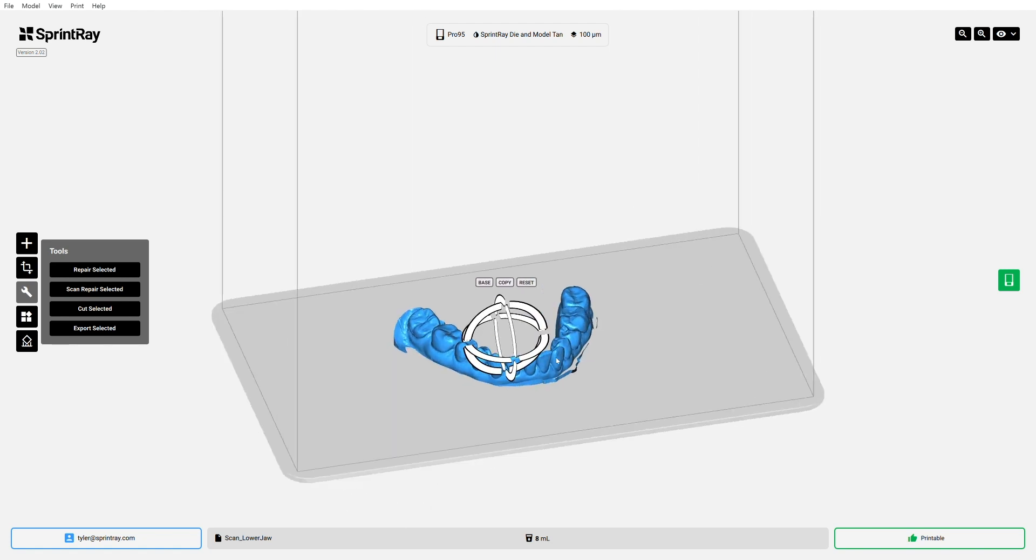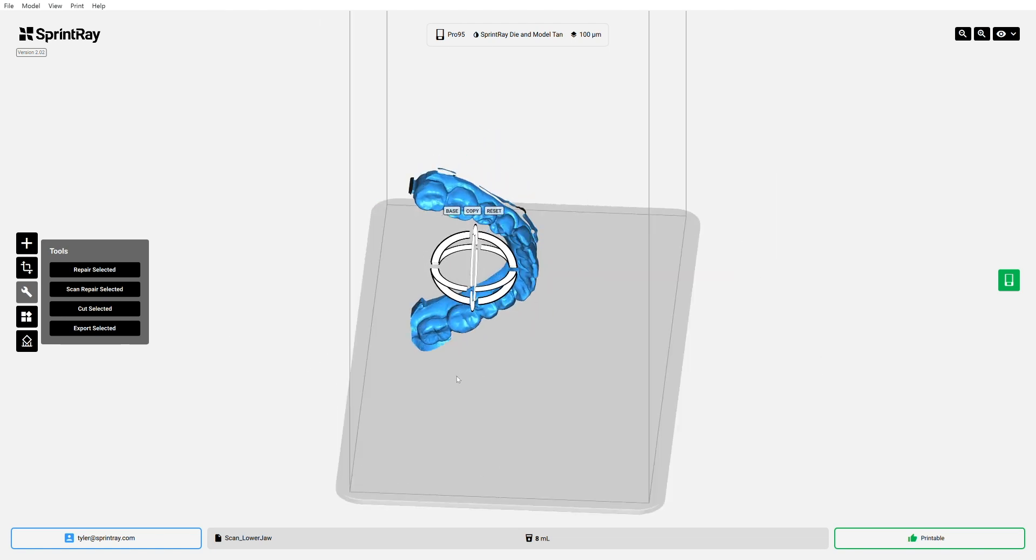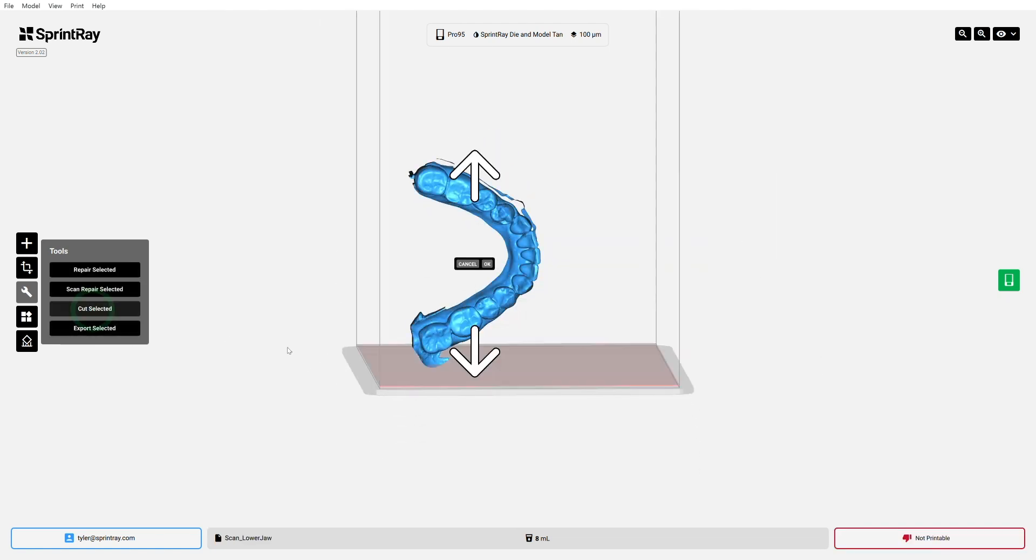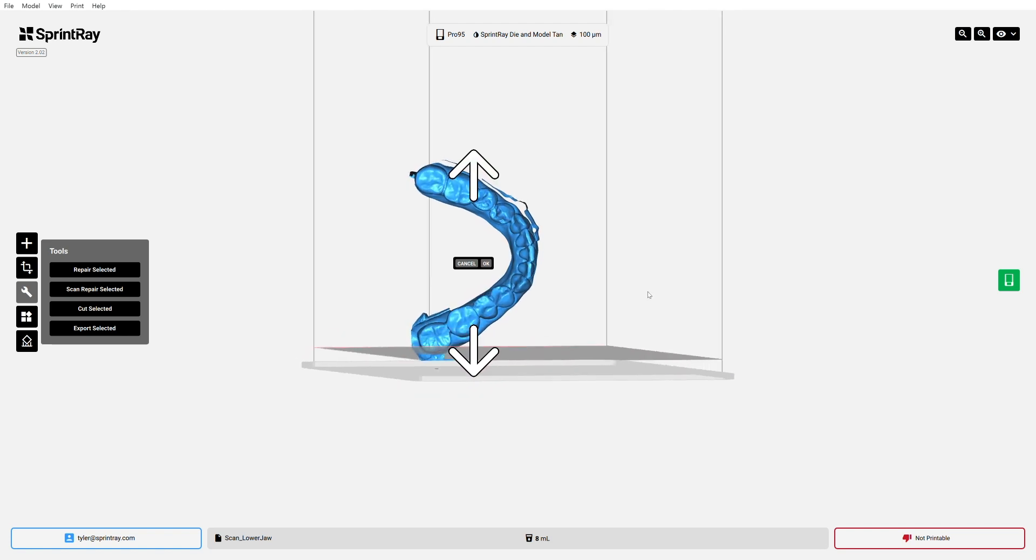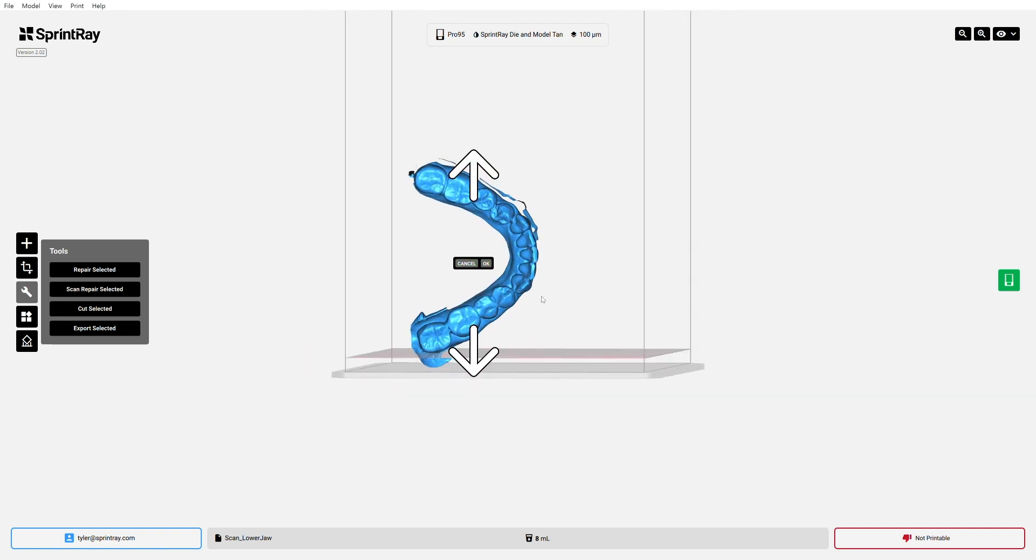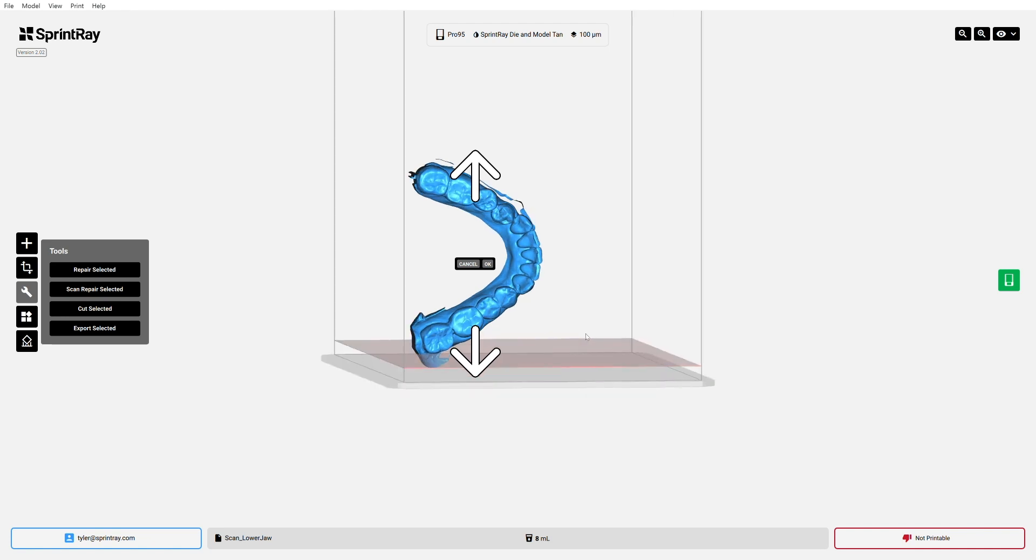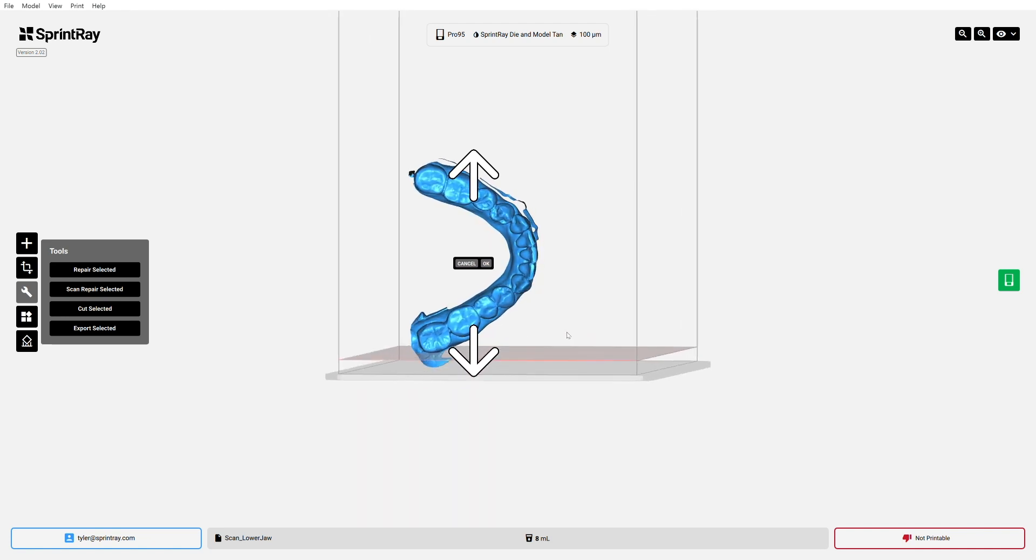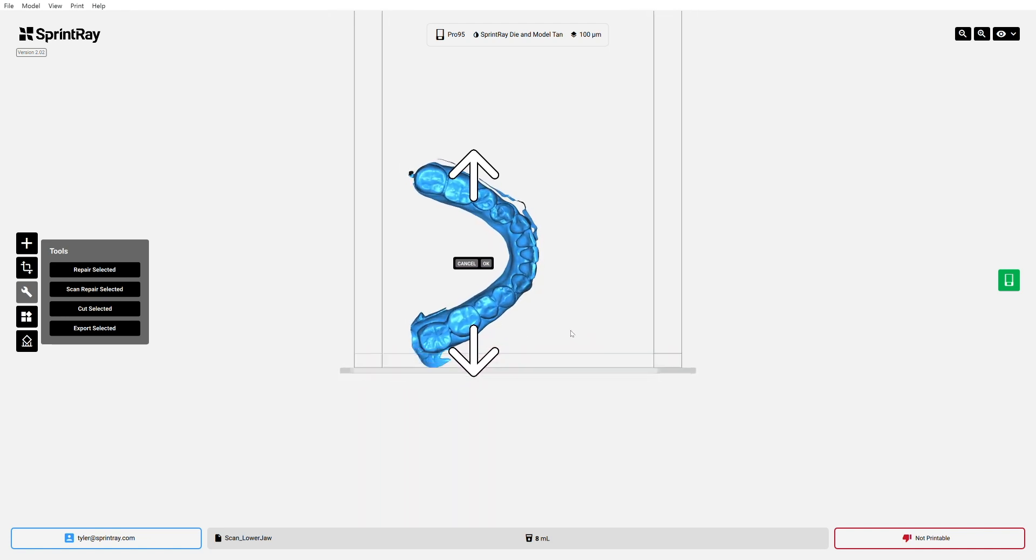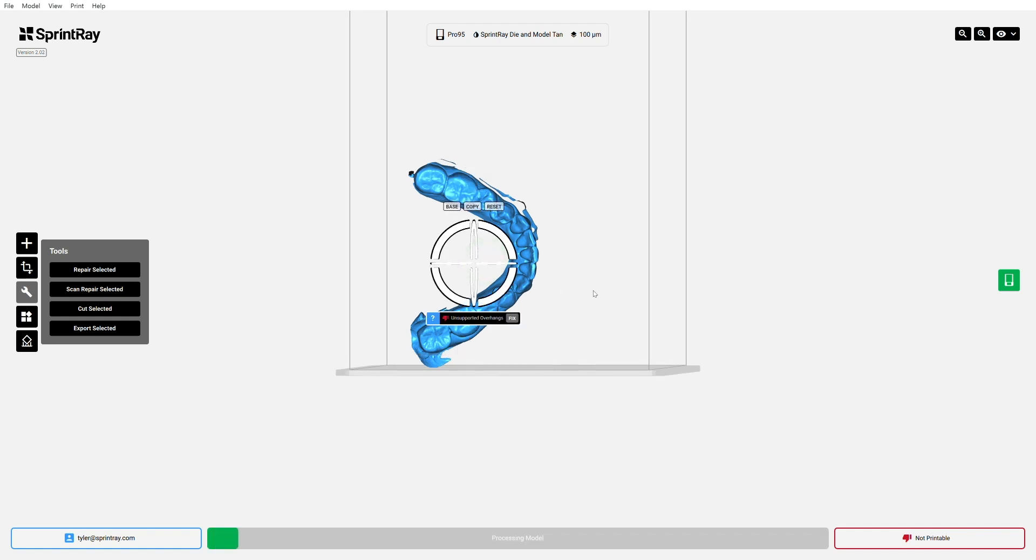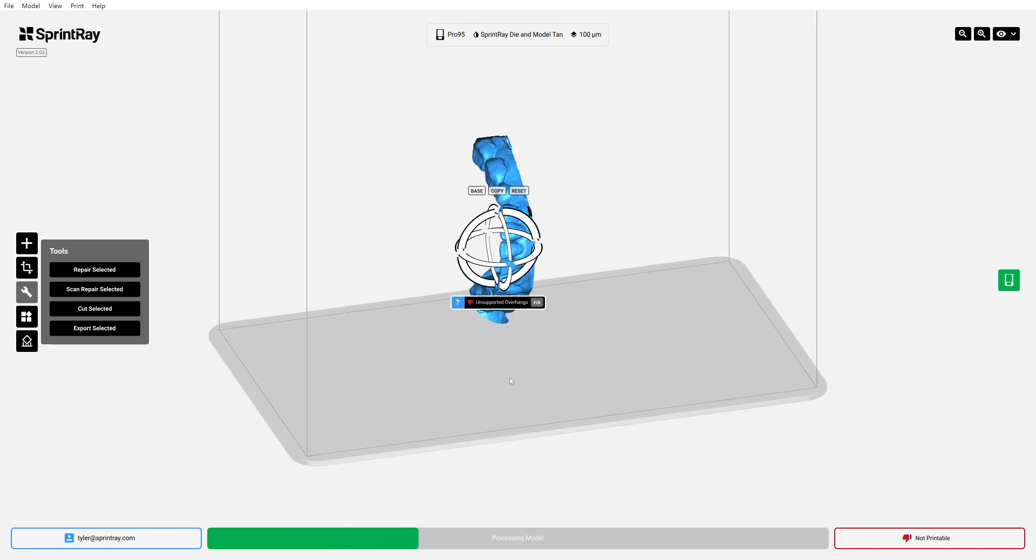So I'm going to grab my model, rotate my gimbal so that it's at about 90 degrees from the platform. And I'm looking at that thinking, yeah, I can kind of get a nice cut on that piece there. So I'm going to press cut selected. I'm going to move my plane up until I think that I've got some of that sufficient area below it that I want to get rid of. Hit OK. And I'm just going to go ahead and just cut that right off. Just make a couple quick clean cuts to the model that are just really going to make it easier, a little bit simpler, and honestly make it aesthetically quite a bit more pleasing as well.